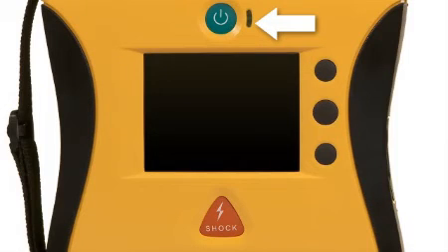The active status indicator, with its highly visible flashing green light, gives you the peace of mind that your unit is rescue ready when you need it.